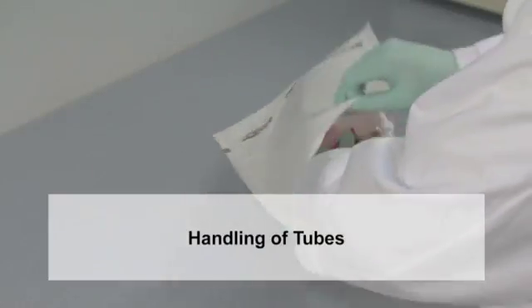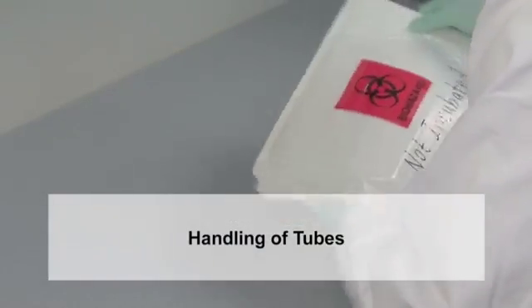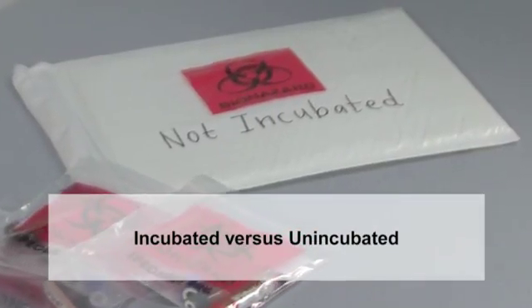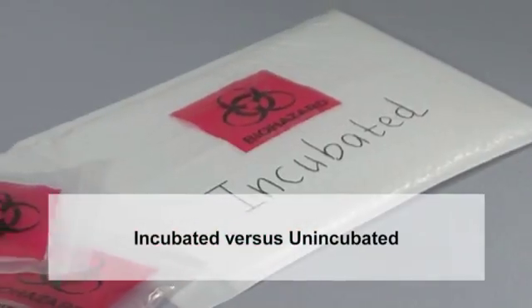Upon receiving blood samples in the lab, it is important to note the incubation status of the tubes. Have the tubes been shipped prior to incubation or after incubation?